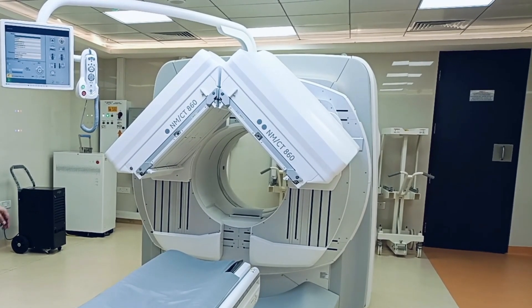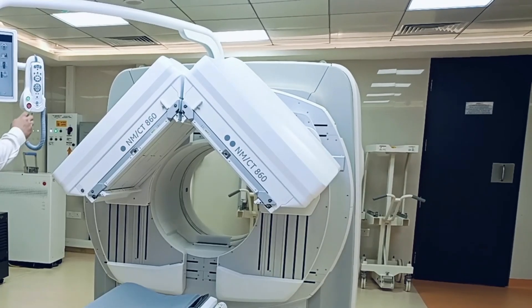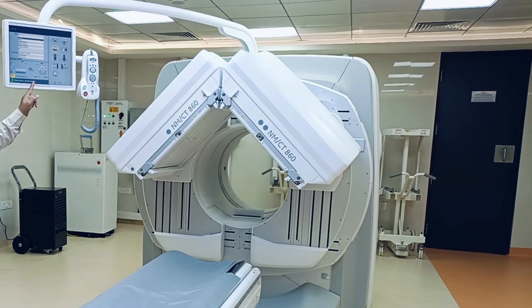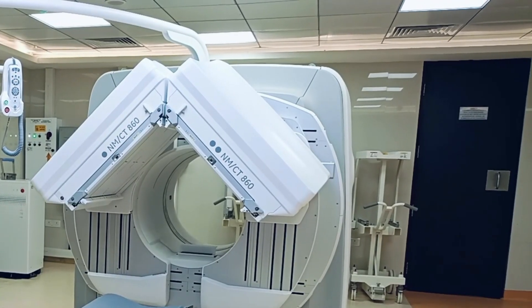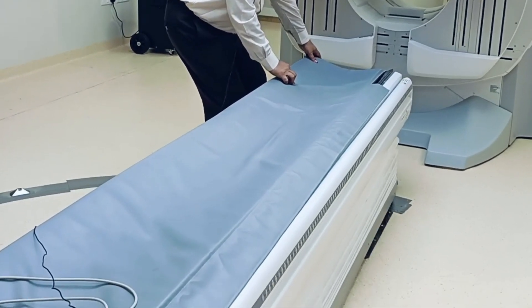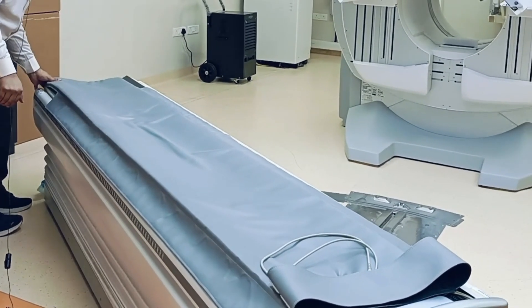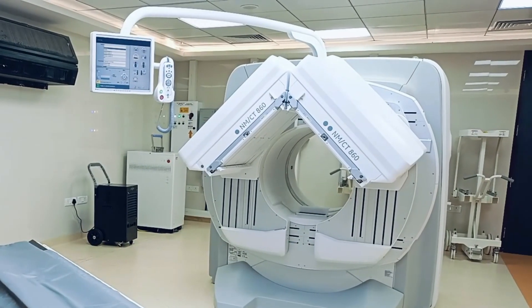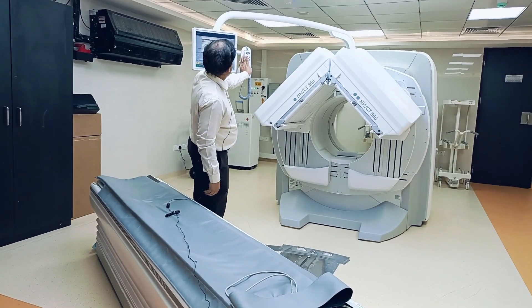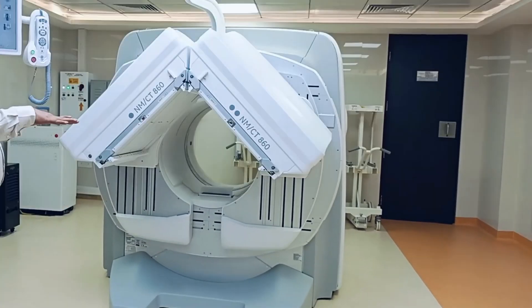Now all motion has stopped. Going to the stretcher mode — pressing set gives a message to move the table to the slanted position. In this position we cannot change to stretcher mode directly, so we first have to shift the table. This is how the table is shifted and locked.